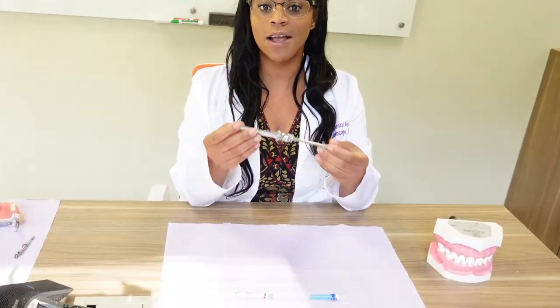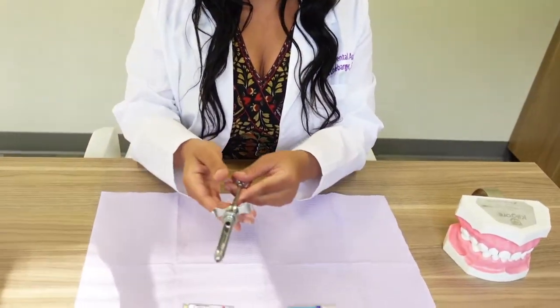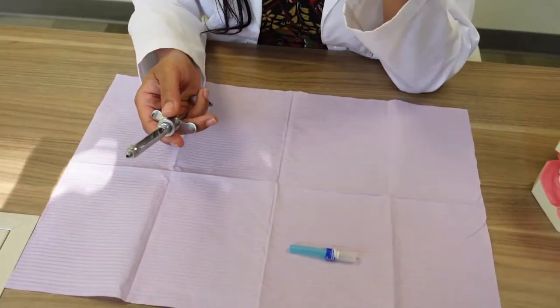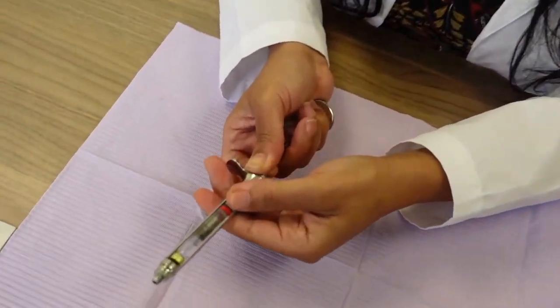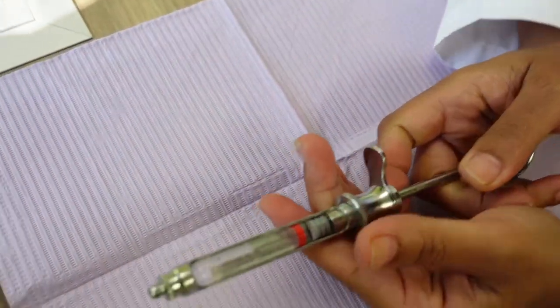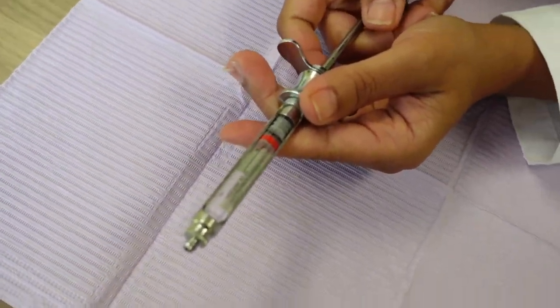Here we go. Now this is an aspirating syringe, of course. This is the actual anesthesia cartridge. Now, of course, when I'm doing this I will usually have gloves on when I'm working with a patient.